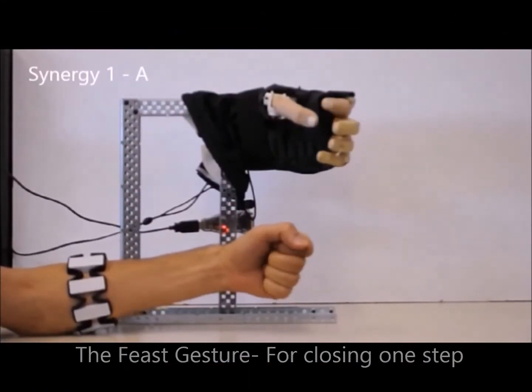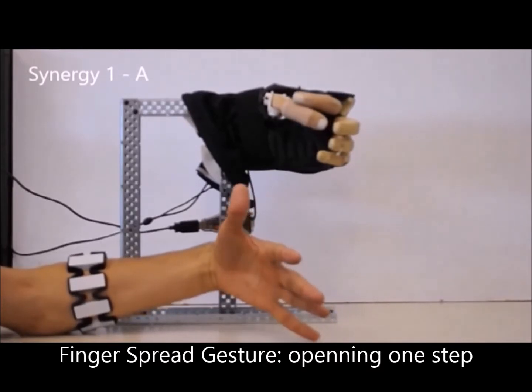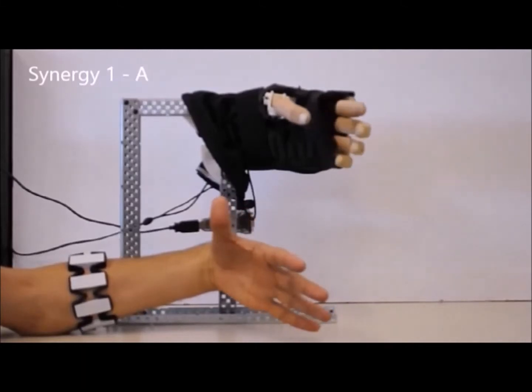ISR Softhand is composed of soft fingers with elastic joints. This video shows the control of the ISR Softhand with the EMG signals of the Myo armband.